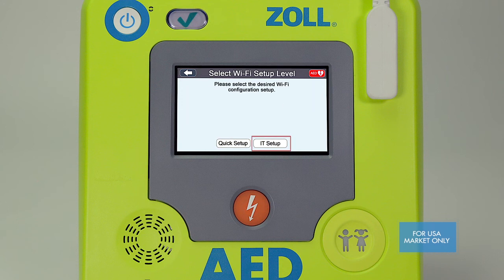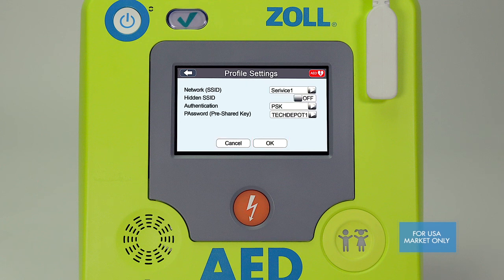At the bottom right of the screen, in both the report Wi-Fi setup and program management Wi-Fi setup screens, there's an option for IT setup. It is recommended that you involve your network administrator if you wish to make any configuration changes in this screen. The Zoll AED3 BLS supports both WPA2-PSK, which uses a pre-shared key, and for more secured networks, WPA2-802.1X, which requires a certificate. Your network administrator will know which method is preferred.